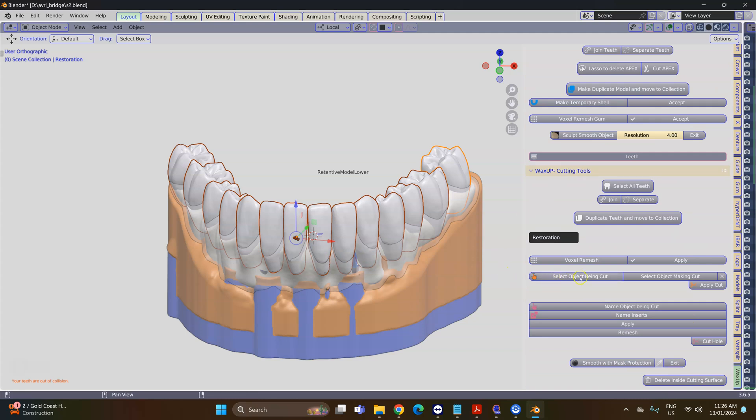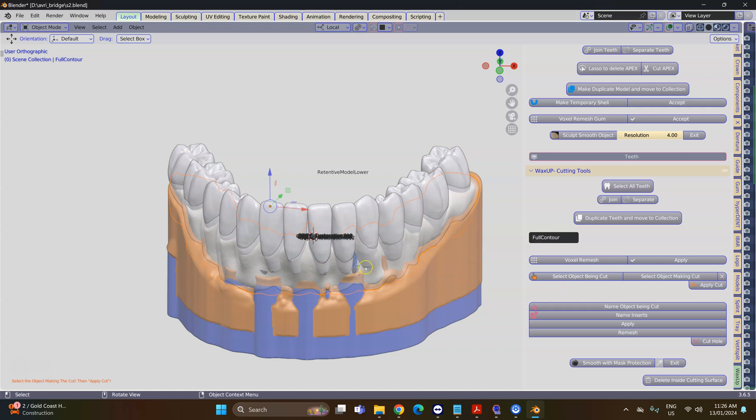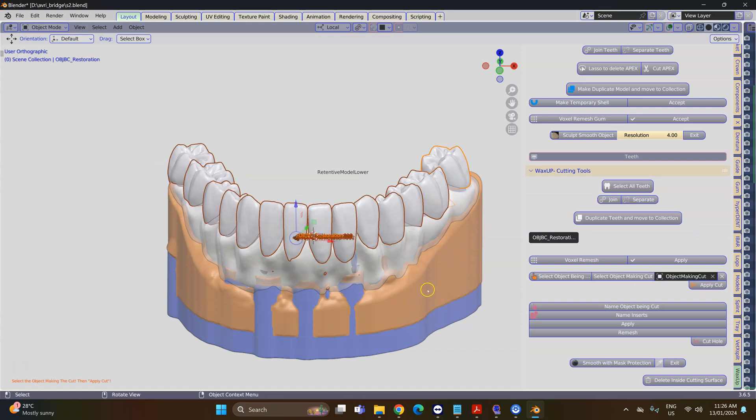Cutting tools—these are the objects that are being cut. Now I'm going to click on that and then select the tissue to make that the object making the cut. Each and every tooth is going to be cut separately and this takes a little bit of time, so please be patient, then apply this.